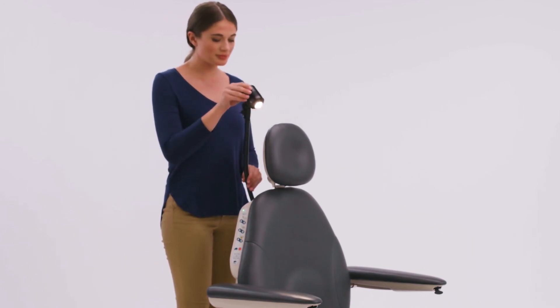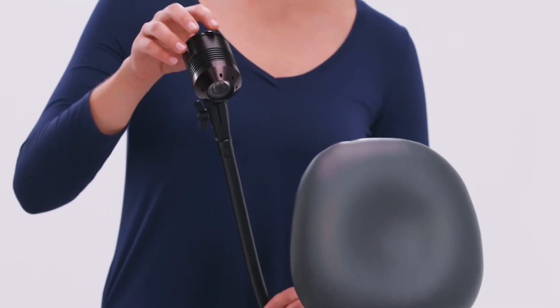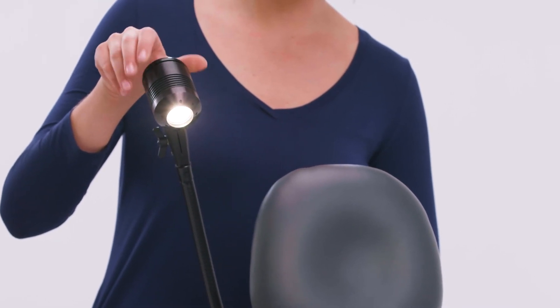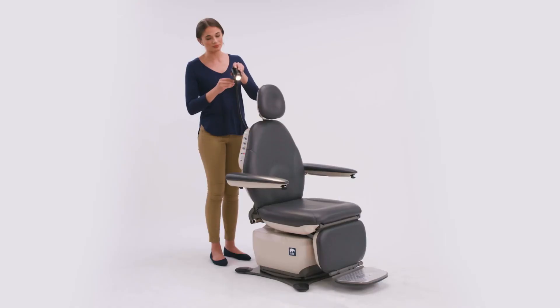With an LED rated at 70,000 hours of life, the Lumeris also features a simple on-off function by simply twisting the knob to turn on the light, and infinitely adjust the light's intensity from 25 to 100 percent to achieve your desired brightness.